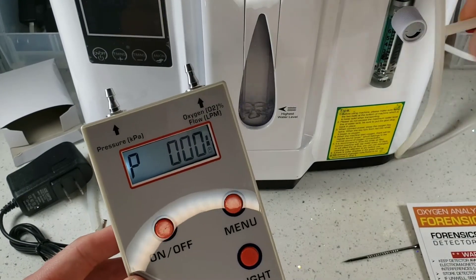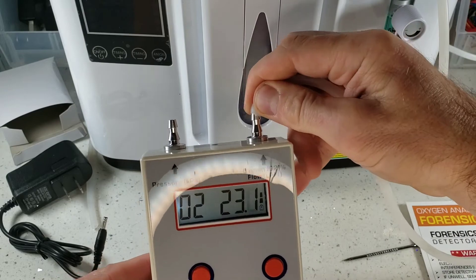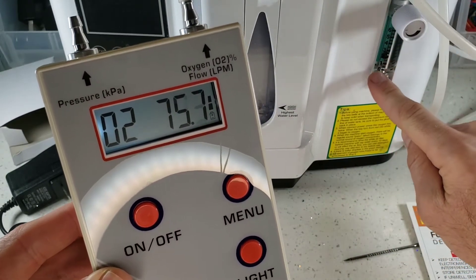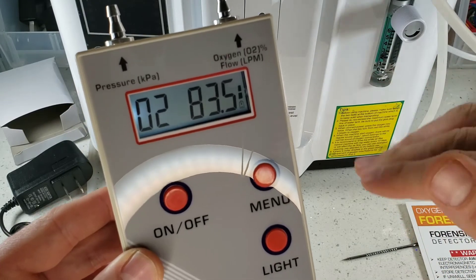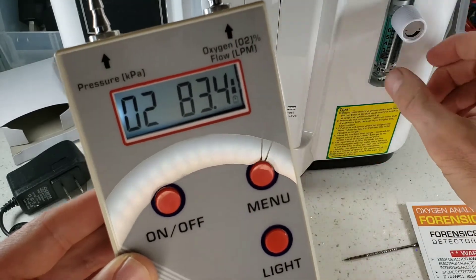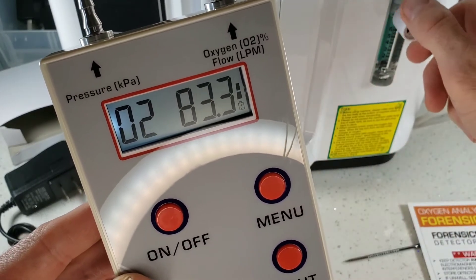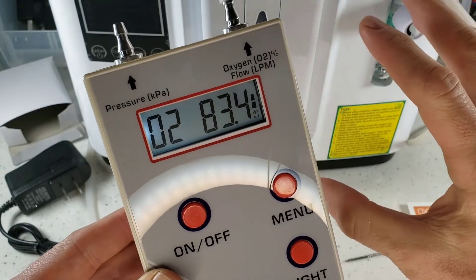Let's go ahead and plug up the oxygen machine I have running in the back and connect up the oxygen sensor. Just plug it up and you will immediately see the oxygen rising. Keep in mind the oxygen concentration is a function of your flow — make sure you're at the right flow and adjust accordingly. The higher the flow, typically the lower the oxygen concentration; the lower the flow, the higher the oxygen. For example, reducing the flow slightly from two liters per minute down to about one liter per minute — you can see the oxygen increase.